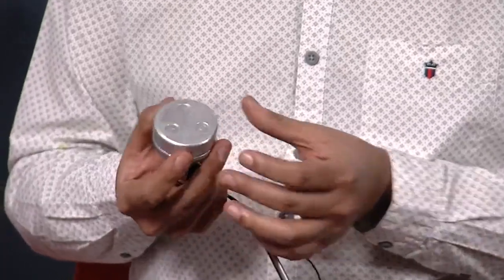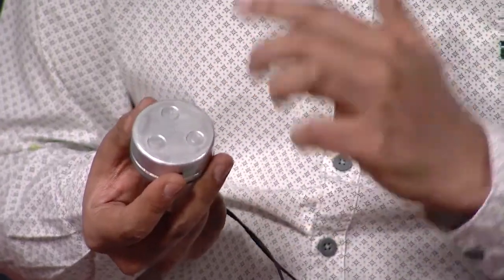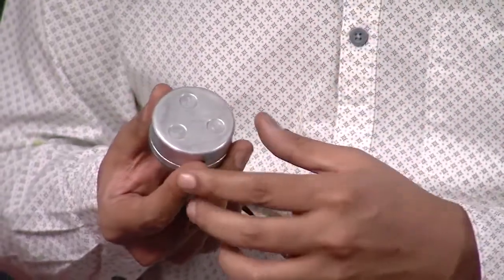That kind of library then becomes a benchmark. We've been really intuitive in the design — it has three buttons: a power button, a button to cycle through modes as you listen to heart sounds, lung sounds, and bowel sounds, and a minus and plus button to increase and decrease the volume. We're keeping functionality on the device as minimal as possible because it has to be intuitive and fast — no boot times, no loading times.